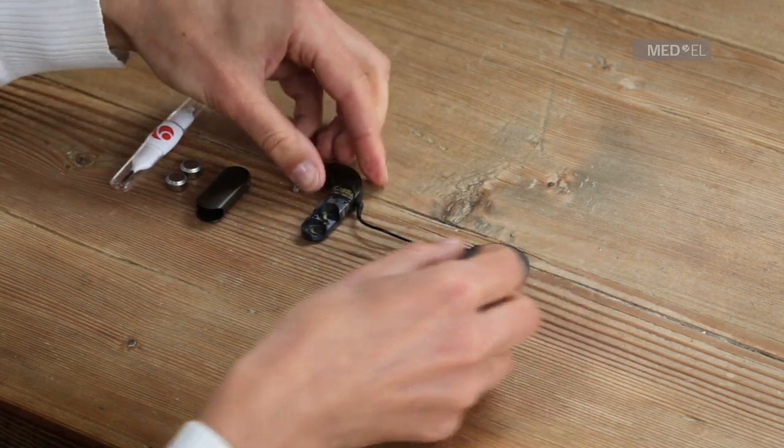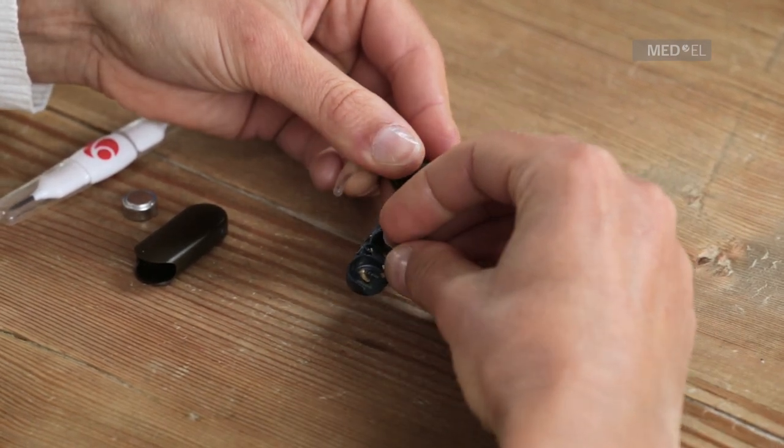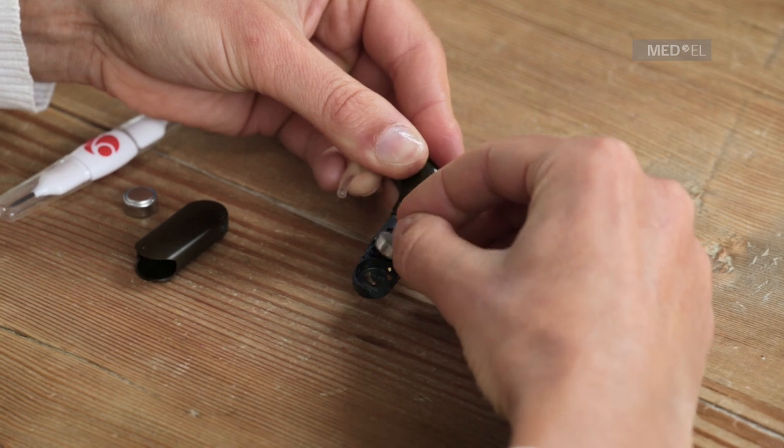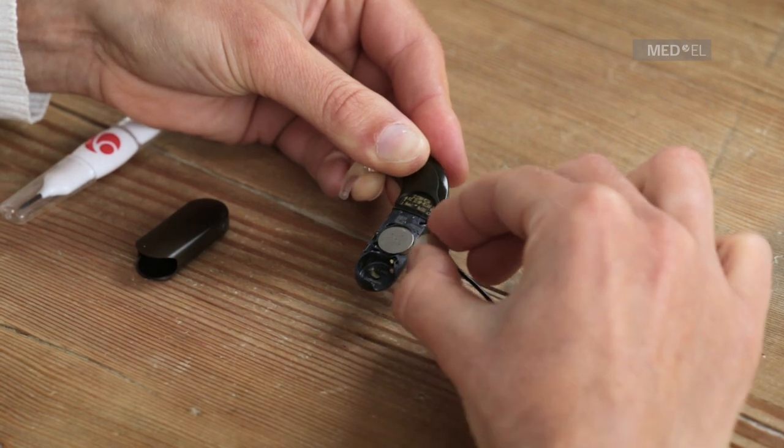Insert the batteries into the battery pack frame with the positive poles facing out. Then slide on the battery pack cover and be careful not to use excessive force.